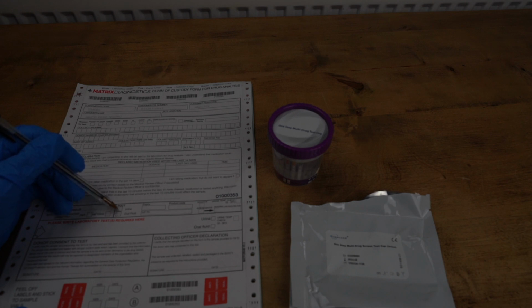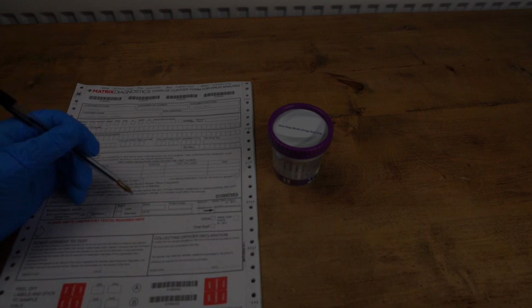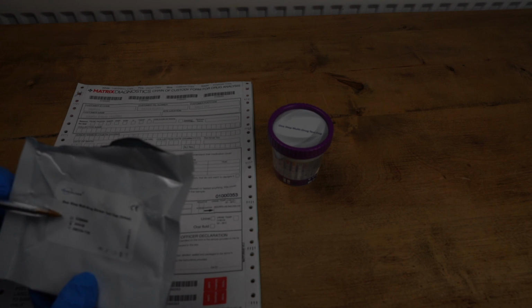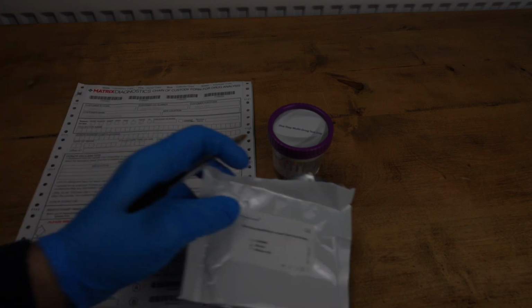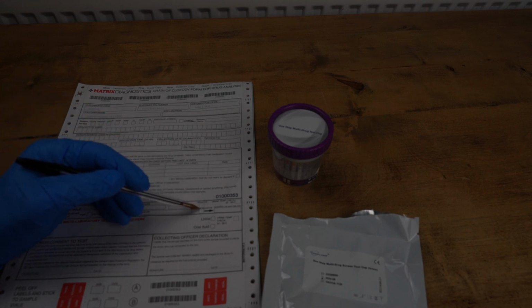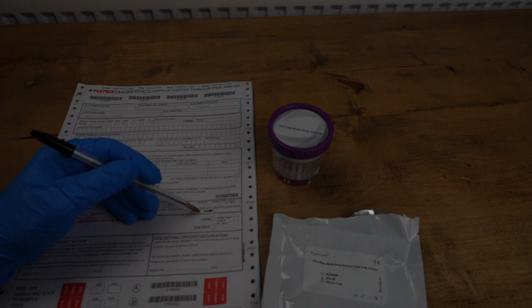You'll need to state whether it was urine or oral fluid. In this case it was urine, so tick the box there. All the details for the point of care test are found on the packaging. So you've got the drug kit lot number, the drug kit expiry date, and the reference number for the test kit itself. You'll need to write that onto here. You'll also need to say whether it was negative or non-negative, and I'm assuming because you're sending a sample off to a laboratory it's a non-negative result.